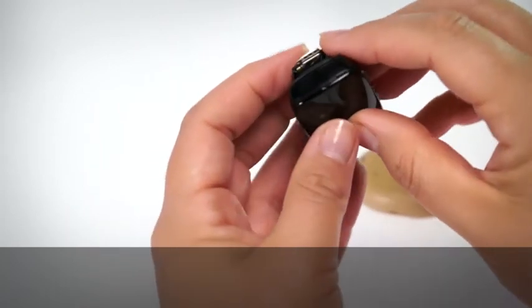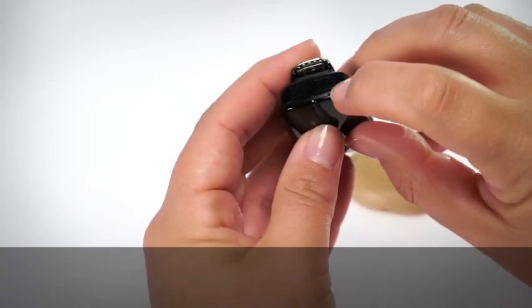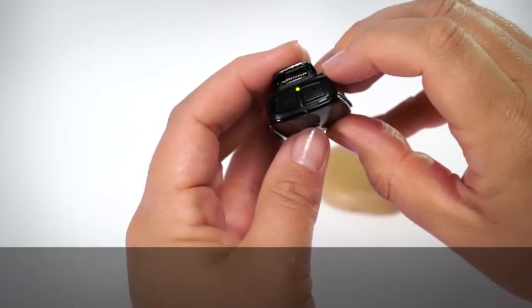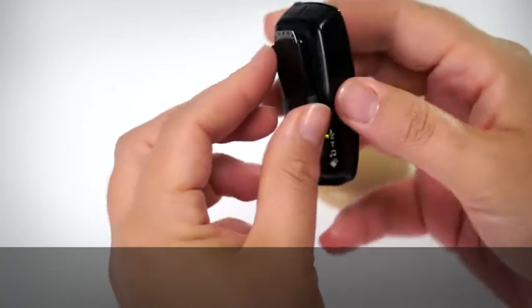Turn on your Mini Microphone 2 Plus. The light on top of the Mini Microphone 2 Plus flashes green when it's turned on.